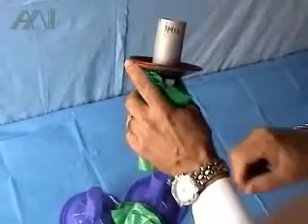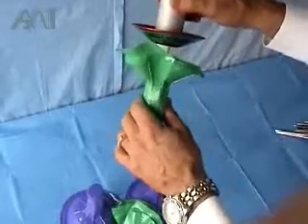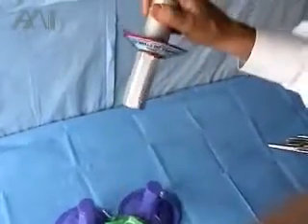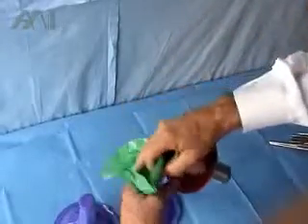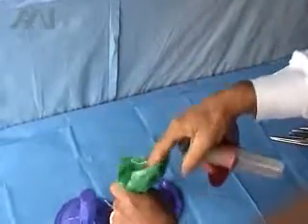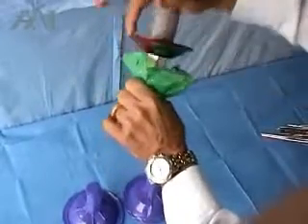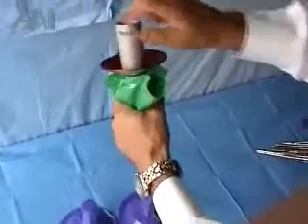If you saw it and felt it, you need to re-glove. If you didn't feel it, there is a problem that you may be using a cover which got contaminated unbeknownst to you — like a contact in the back while you are careful of the front.